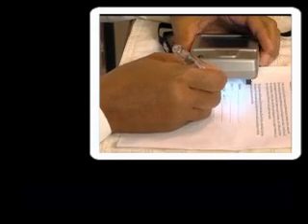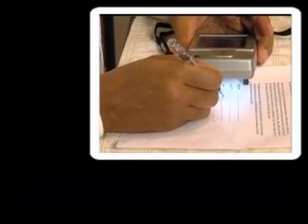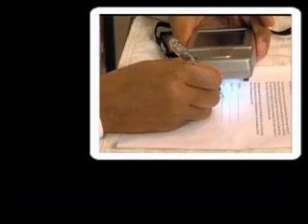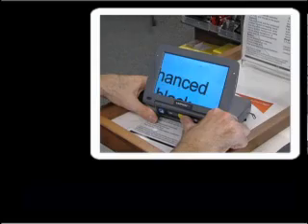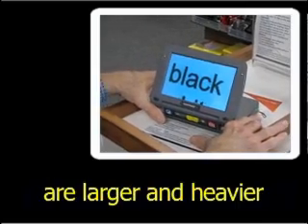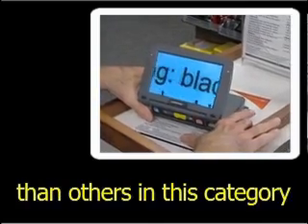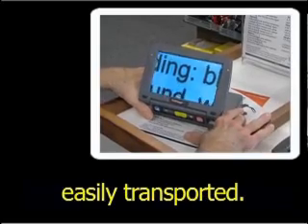Another smaller unit scans from about two inches away, allowing a user to sign a check or fill in a form. These video magnifiers are larger and heavier than others in this category and are not quite as easily transported.